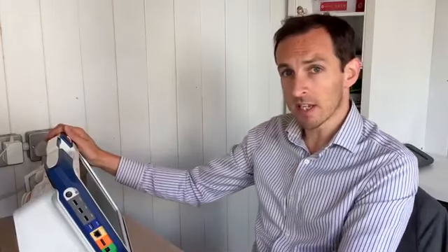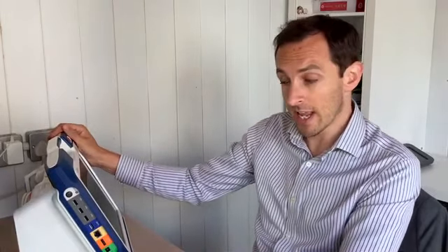I'm a clinical representative with Boston Scientific. I've been doing this for about 6 years now. I normally support troubleshoots and implants throughout London and the South East, but today I'm going to take you through the 3300 PSA and programmer.